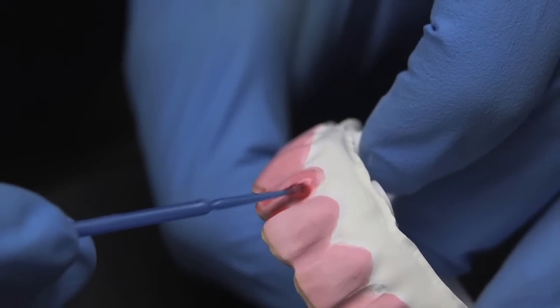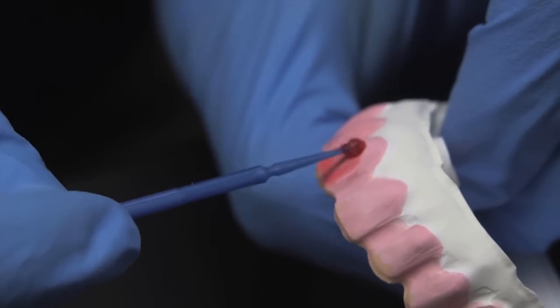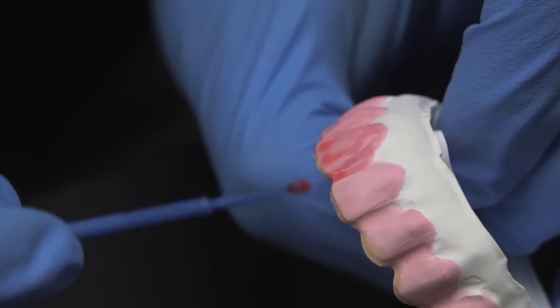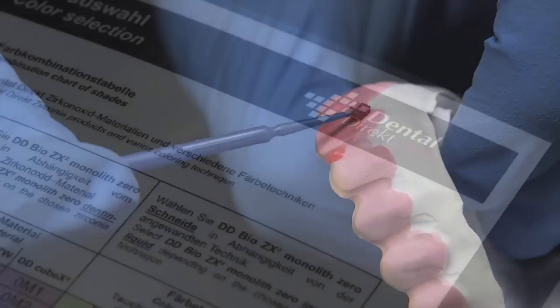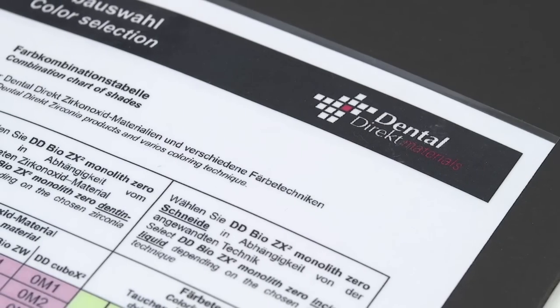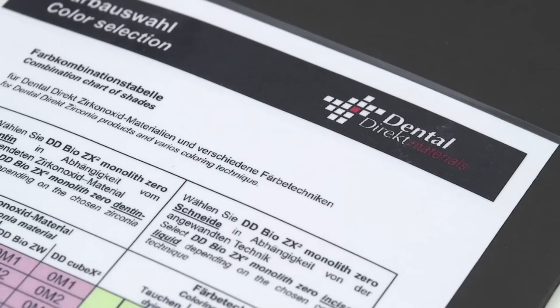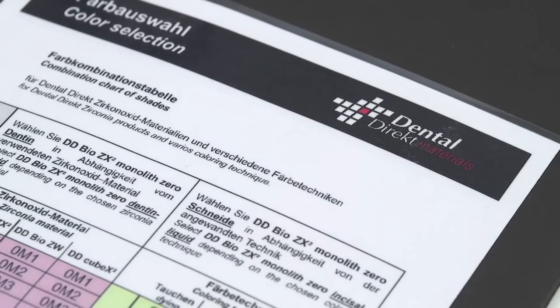This video outlines the shading techniques successfully implemented by dental arts laboratories for both the CubeX II and BioZX II zirconia products. In your starter kit, you will find a shading guide for both the CubeX II and BioZX zirconias.